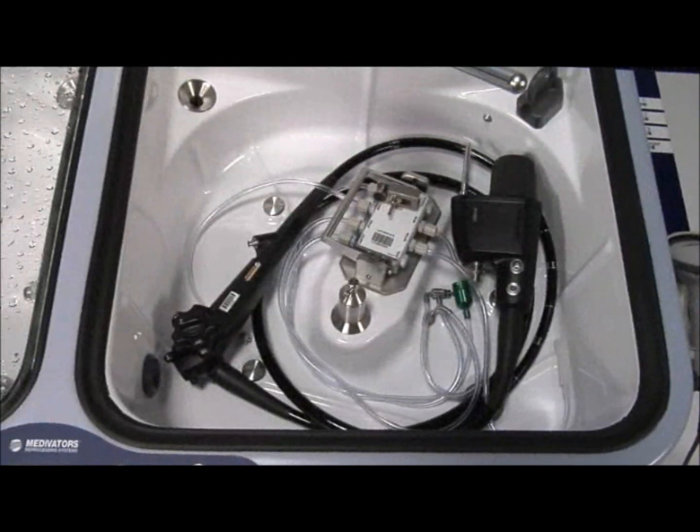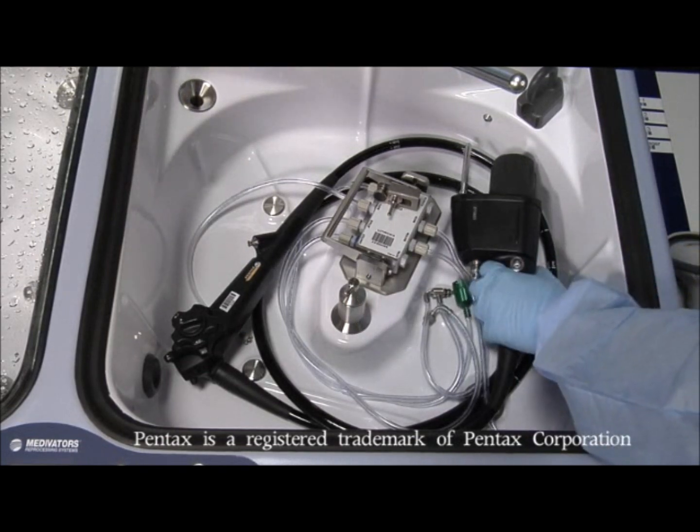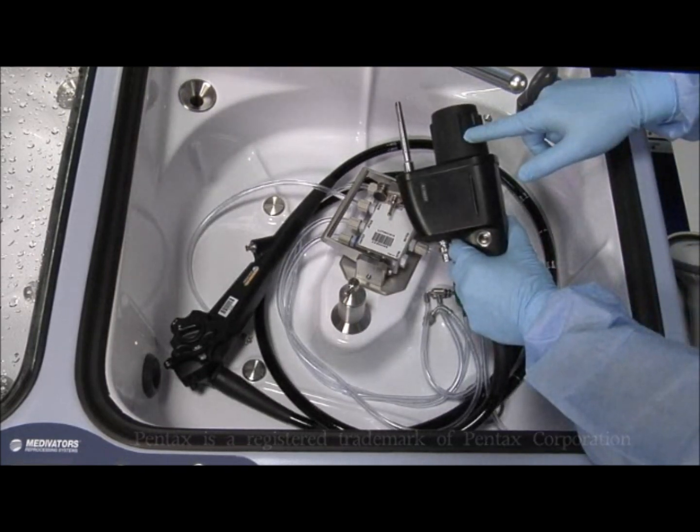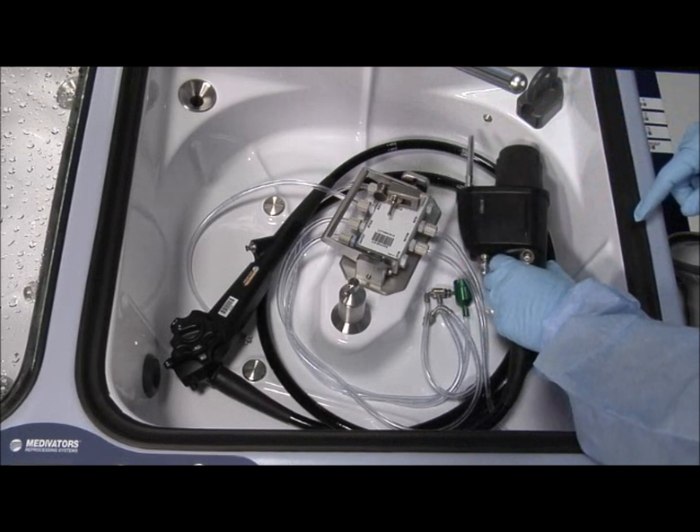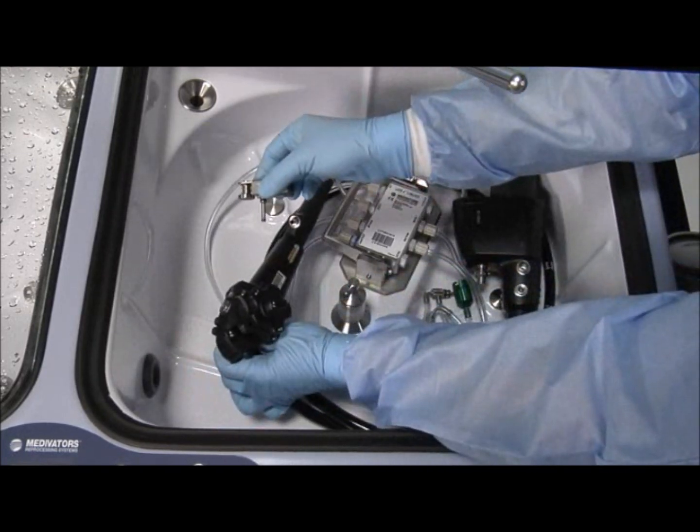We will demonstrate the connection of a Pentax 70 series endoscope to the 28534HAN hookup with a waterproof cap already attached. Connect the channel separator to the air, water, and suction cylinders on the scope.